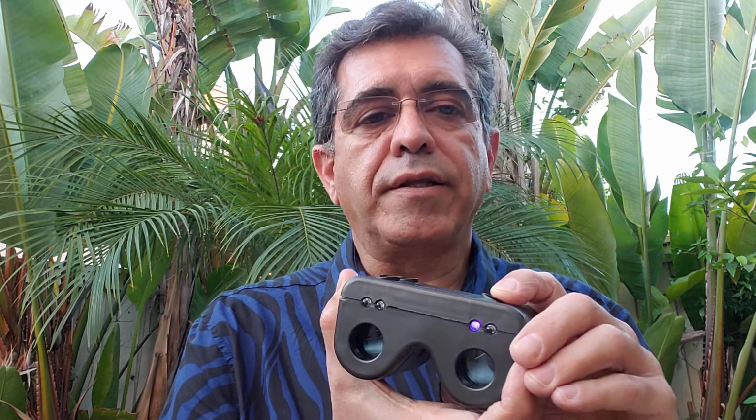This is useful for when you don't have access to a slit lamp and there is some complaint of a red eye or painful red eye. And this would be, for example, in nursing homes or hospital bedside testing. And since it's a portable device, you can take it with you to these settings. Or even in the office, if there's a room that doesn't have a slit lamp, you can easily check for these things. Just put a little bit of fluorescein and you can decide, because it's magnified and the UV light, you can decide if it's a corneal foreign body, maybe a corneal ulcer, or just an abrasion.